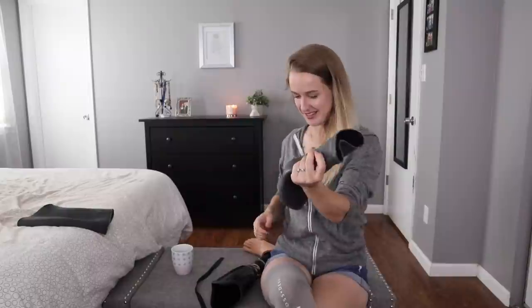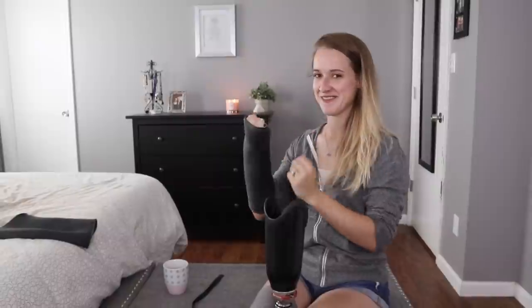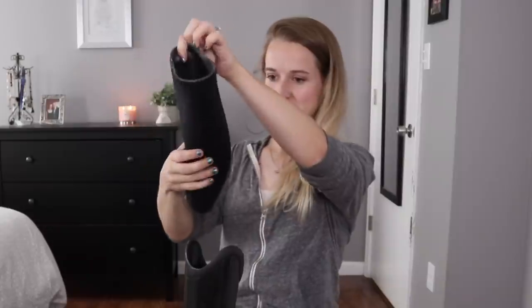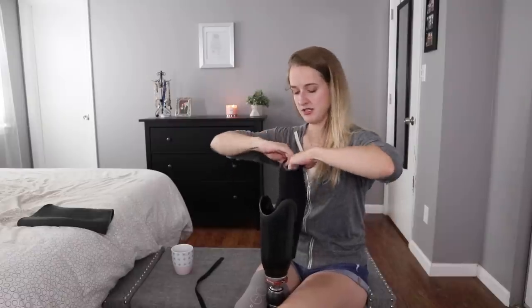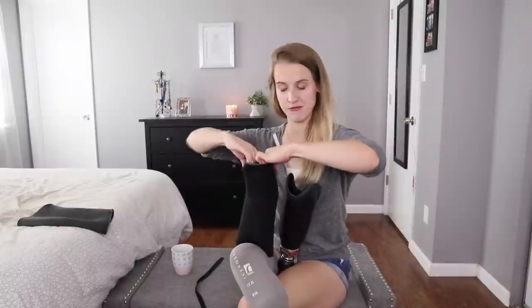I also want to say that this looks super super small — compare those two openings. I really hope my leg isn't too muscly for this. Zach and Tyler and the team put this on the right way. This does not seem long enough; I'm gonna trust the process. Just to give you an idea, this is me stretching this pretty hard and I've got to get it to fit over that. This is a challenging feat. Oh, I do like the fabric though. Got to get the knee forward — this is really small.